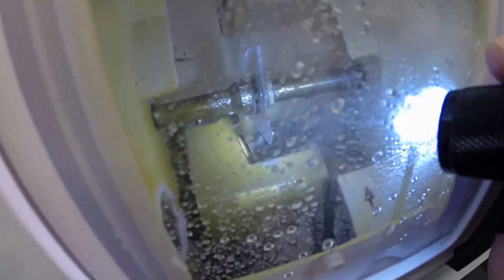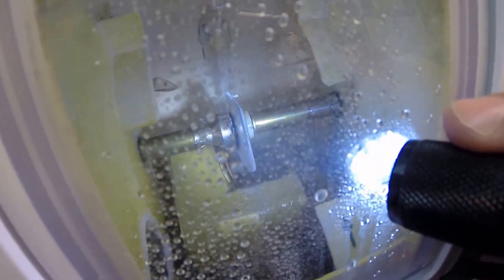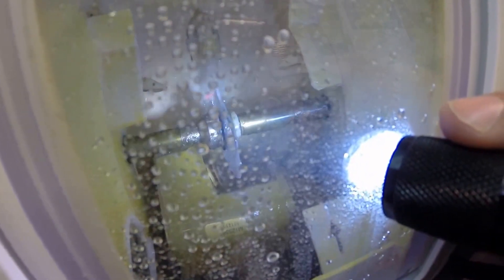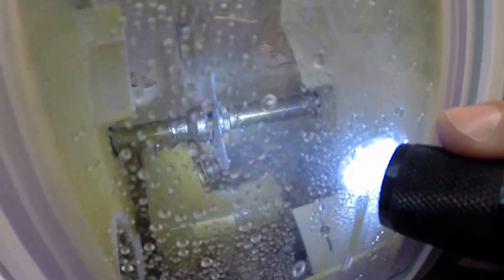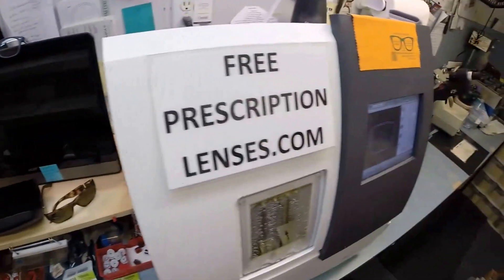You're also going to get one of my own premium microfiber cleaning cloths. I include instructions not only for how to care for your eyeglasses and lenses, but for your Versace case and cloth and for my cloth, so they'll last you for years and years. No other seller on the internet is doing that. I also include a photo request to have your picture on the website. Tyler, I'd love to have your picture wearing these. You can see water spraying on the lens—that's just to wash away the optical sawdust. That little spinning wheel is placing the safety bevel onto the lens.